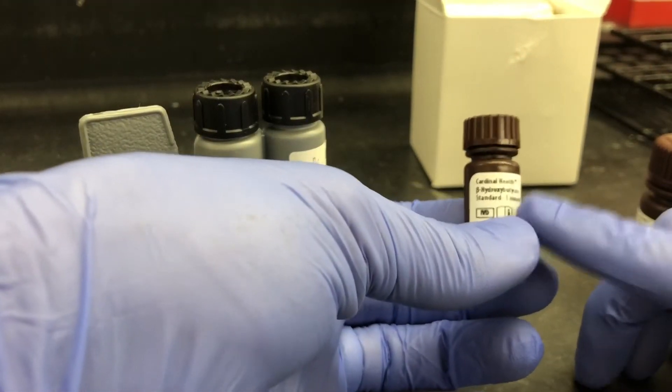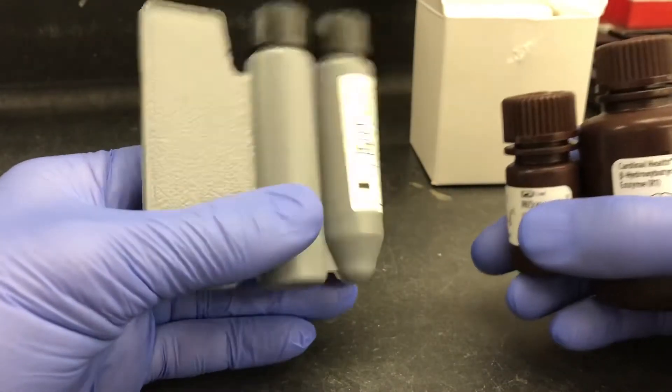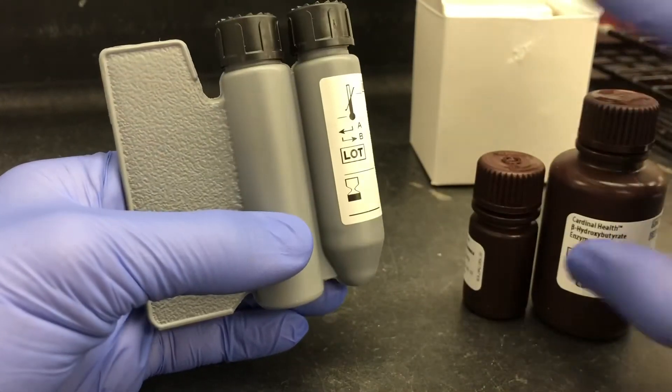Beta-hydroxybutyrate, this kit, also comes with a standard for when you calibrate, which you would have to do every time you add one of these reagent packs.